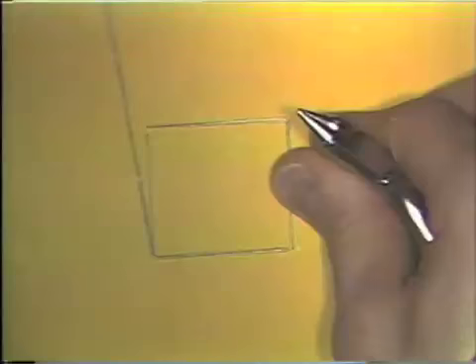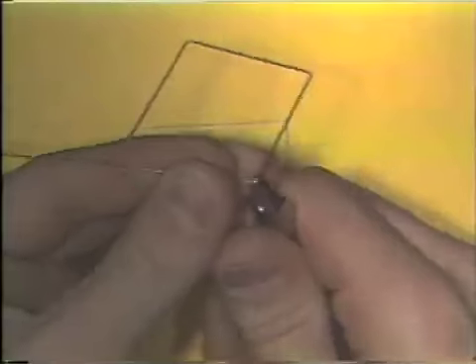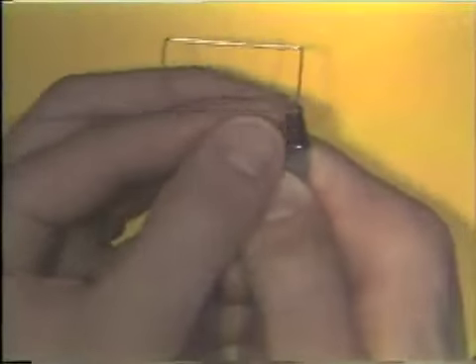Okay, the bend was not sharp enough yet, so we'll put some more bend into it. Each time you make a bend in a wire, you have to be aware of the plane in space. In other words, you have to orient the wire correctly in the beaks of the plier.